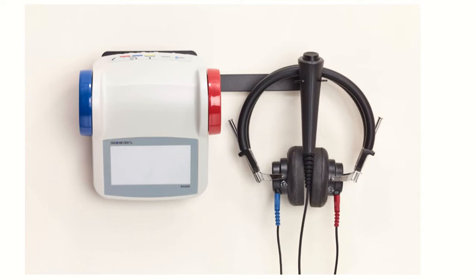And today we're going to go over a quick video on how to run a daily biological on your RA-660 audiometer with the Hercon software.